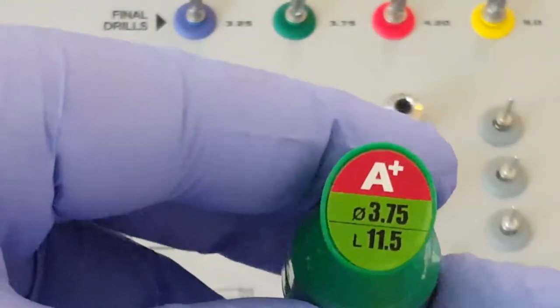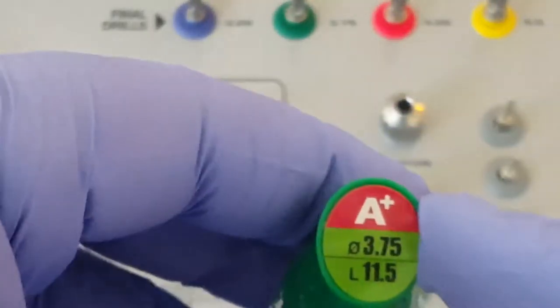If we look at a green vial, green again is 3.75. This is a plus, advanced plus implant.